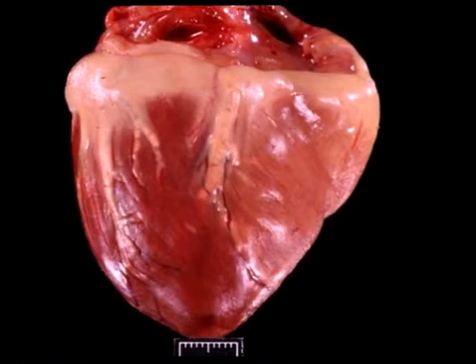The first slide is tissue from a dog. I'd like you to give me a morphologic diagnosis, a pre-existing condition, and an associated hematologic or biochemical abnormality. Now, you can pause this for a minute or a minute and a half to answer these questions. I'm going to go ahead and give you the answer. I'm assuming that you've paused it on your own.